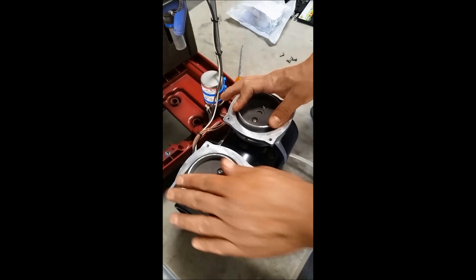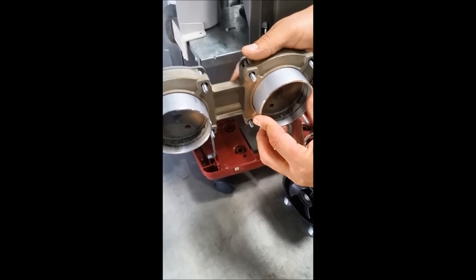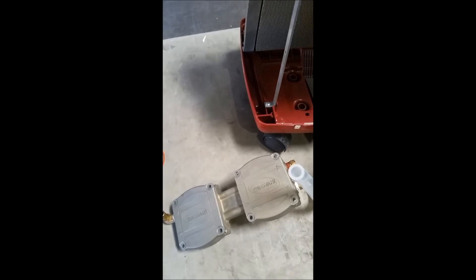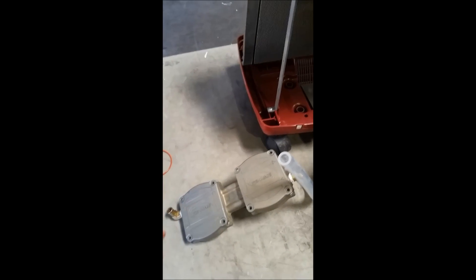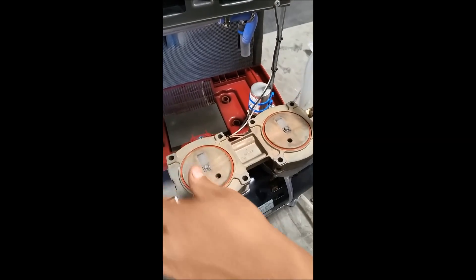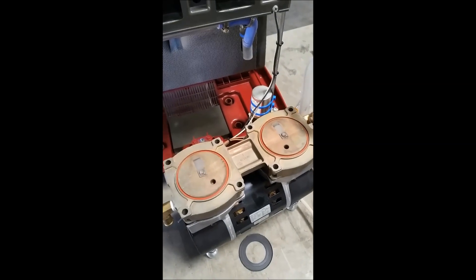We're done with that part. Here's your original head gasket cap. We're going to pull off these rings here because you've already replaced them and they're not necessary. Keeping mindful of the direction that you originally pulled this off, you can see we still have the hose facing the same way, so we've stayed completely accurate. We're going to pick it up, set it on top of the compressor and then flip it upside down so there's no way you can confuse which direction you had the compressor during the rebuild.